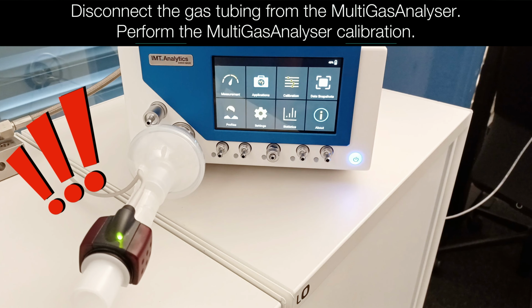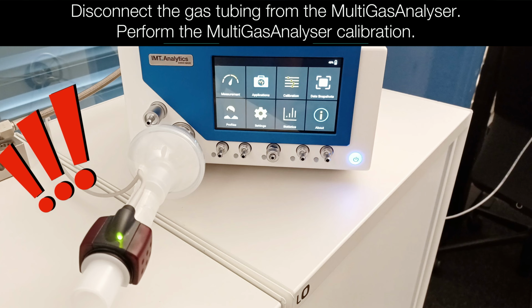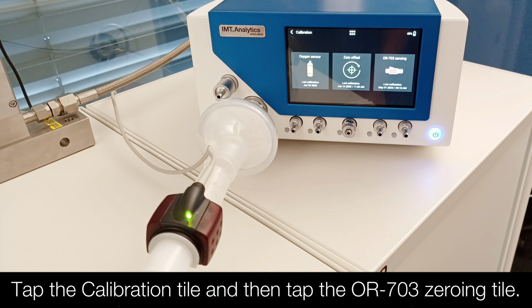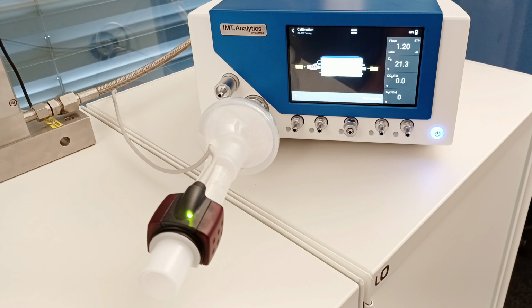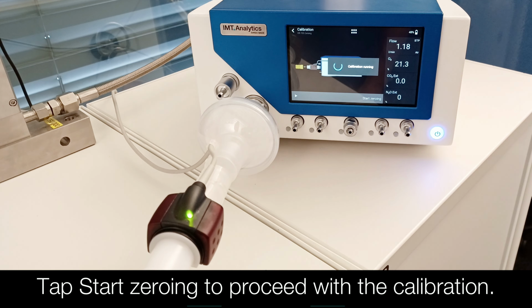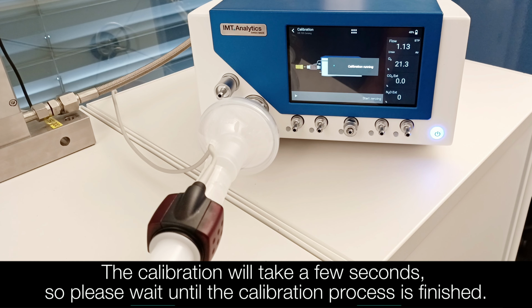Disconnect the gas tubing from the MultiGasAnalyser and perform the MultiGasAnalyser calibration. Tap the calibration tile and then tap the OR703 zeroing tile. Tap Start Zeroing to calibrate. Please wait a few seconds until the calibration process is finished.